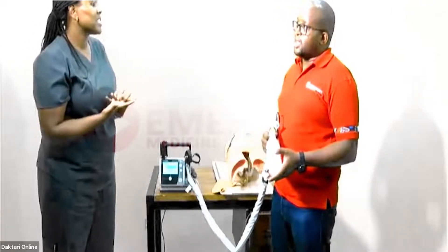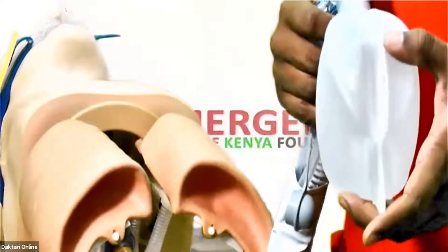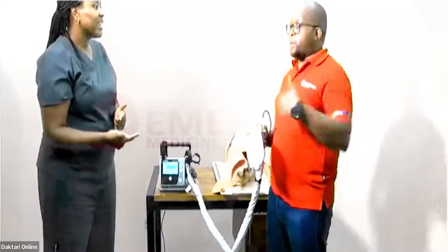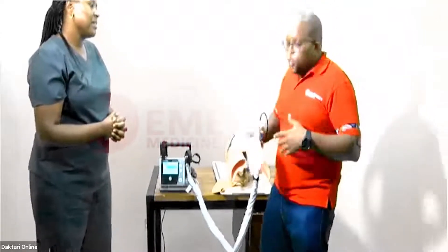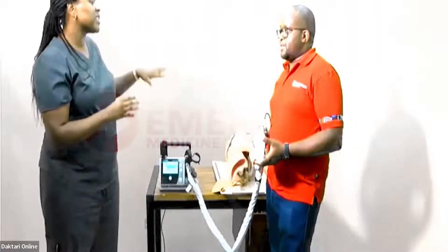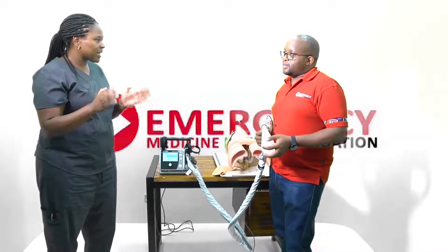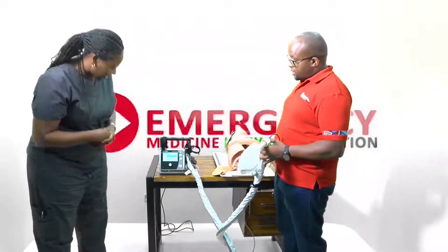Many emergency patients are hyperventilating before intubation — sometimes at rates of 30 breaths per minute. Thirty is not a bad starting number; you can start there and then wean down the ventilator rate. We'll choose IPPV mode for our patient. PRVC — pressure regulated volume control — regulates the pressure while guaranteeing the volume. At the end of the day, the most important thing is knowing how much volume is getting into the patient, not to exceed 6 mL/kg.